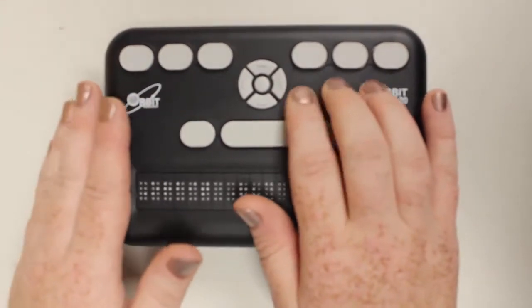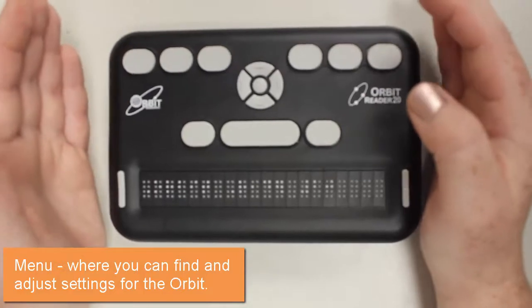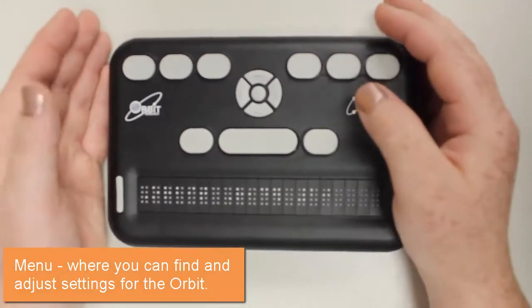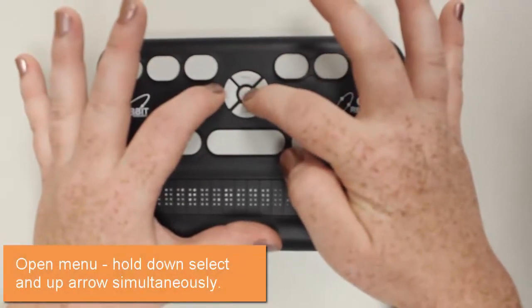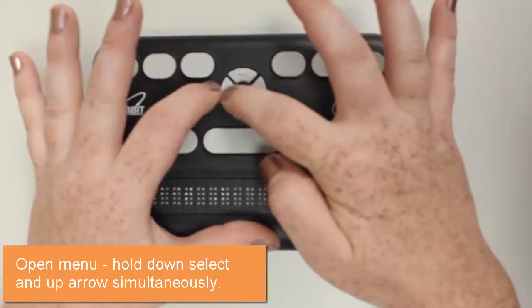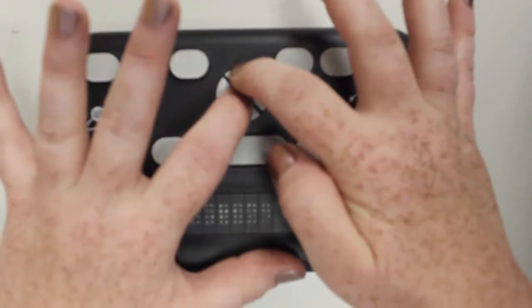What is the menu? The menu is where you find all of the settings for the various features of the unit. To enter the menu, you're going to hold down this select key in the middle of your navigation cross area and hold the up arrow.